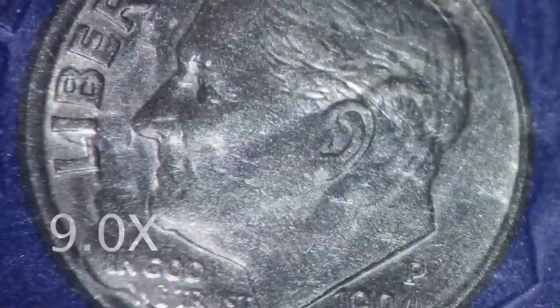When I'm finishing margins of crowns and finishing polishing restorations, I jump it up to 14x. At this level, you can definitely see things that nobody else can see and you can get a much, much more accurate finish. At 22x, I am usually looking for root canals that are tricky to find or doing fine-tuning of existing work.